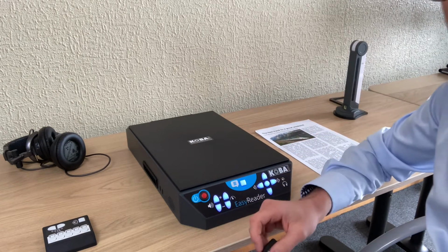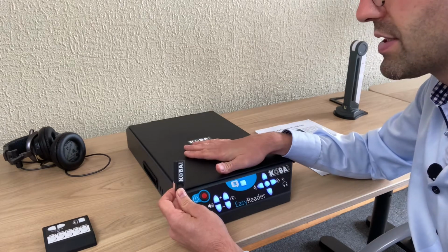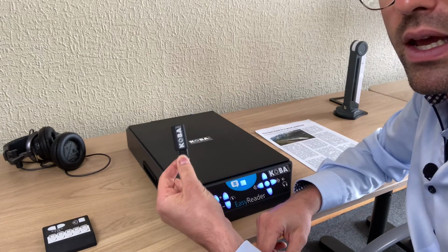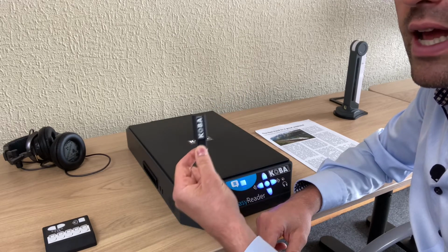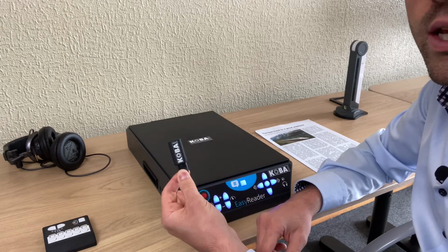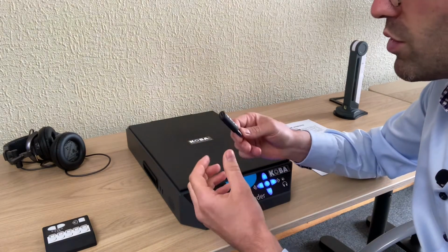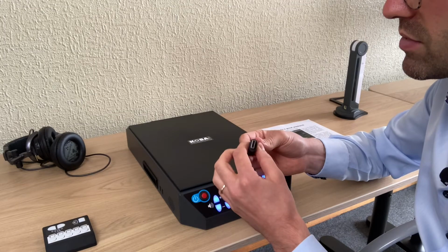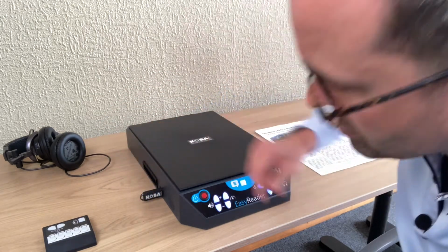By default, you also have the possibility to store the text that you have scanned to a USB stick. It's saved as a TXT file, as an MP3 file, and also as a PDF file with image, of course. So how can you save to a USB stick? That's quite easy. So I just insert a USB stick into the machine over here.